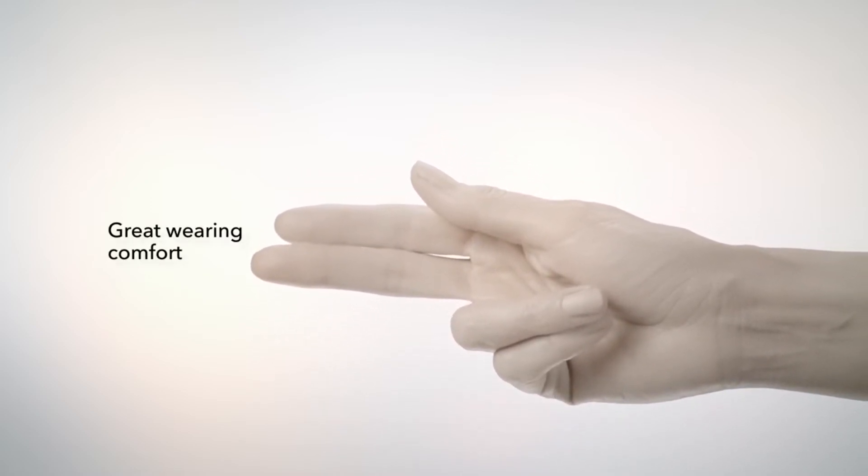Second, and just as crucial for your patient's satisfaction, amazing wearing comfort.